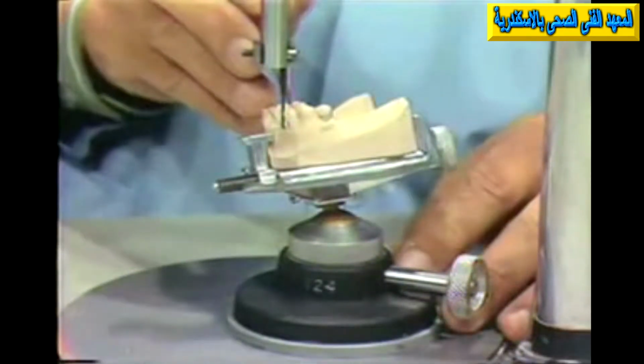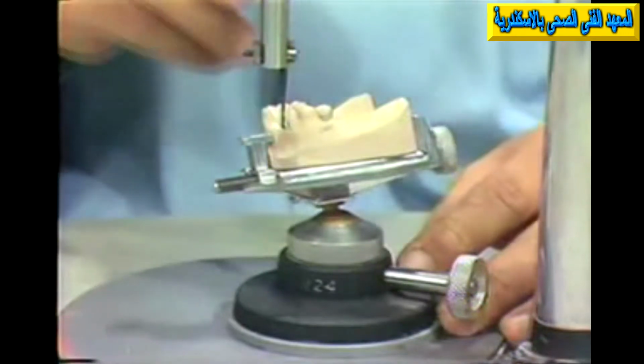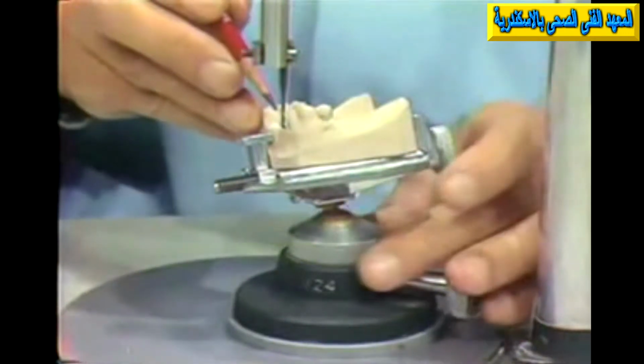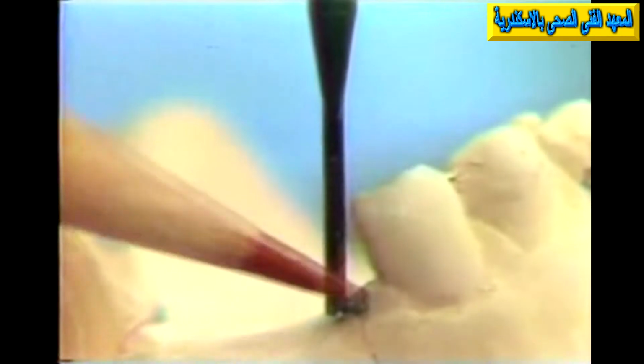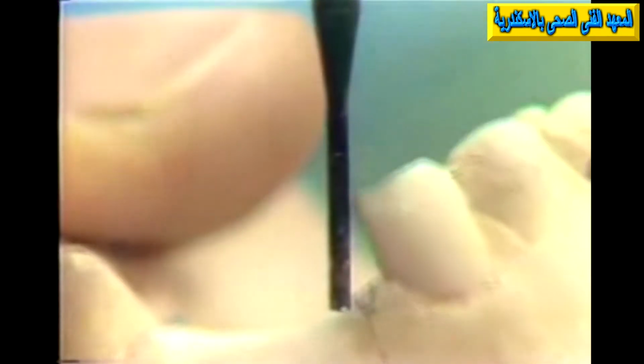Therefore, we would have a large space showing, and if we were looking for a very aesthetic anterior tooth form, we might have a big gap showing in there because of the fact that we cannot build that tooth tightly up against the cuspid next to it. If we had even more of a tilt, we might very well find that the shape of our replaced tooth in the anterior might get a little bit strange. It might become very long and thin with a big space in here, and this would not be very aesthetic.